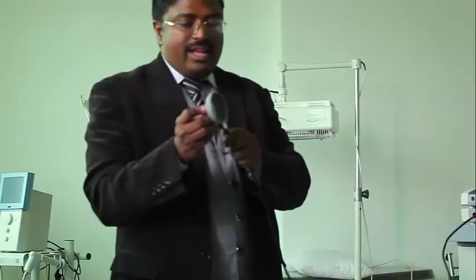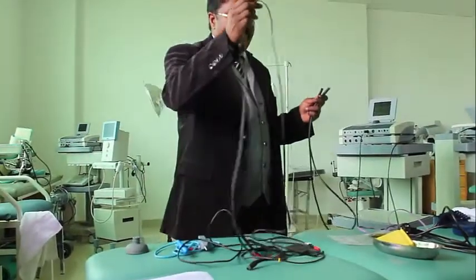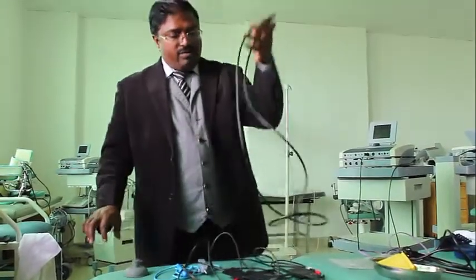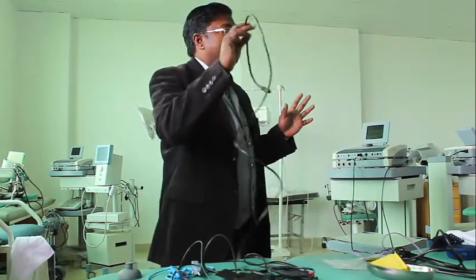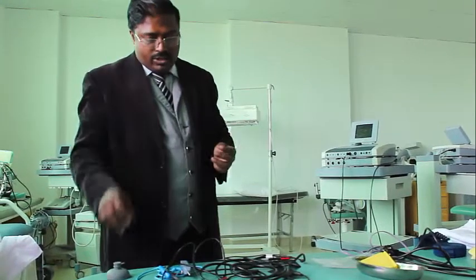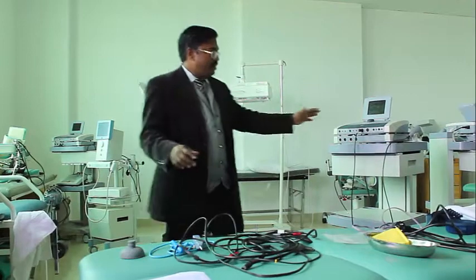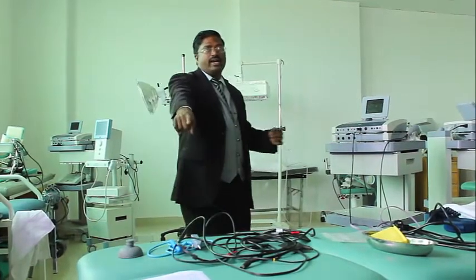So this is the lead for the vacuum electrode. I will keep two leads, one for carbon rubber, one for vacuum. You should be able to identify which is the vacuum electrode lead and which is the carbon rubber electrode lead, by the hole, by the openings. So now you understand the connecting leads between the machine and the electrodes.